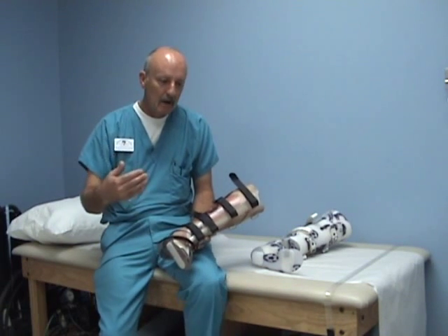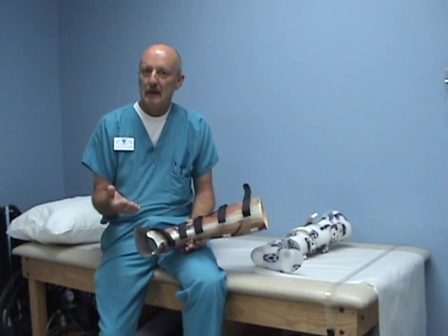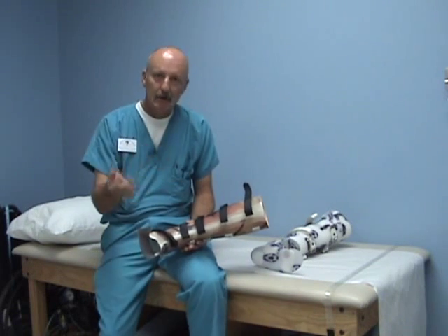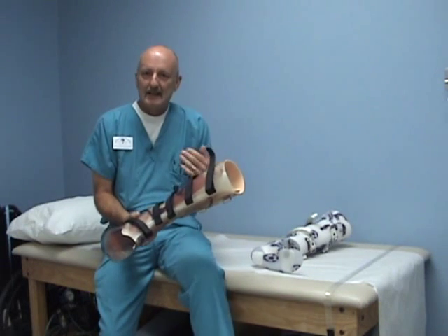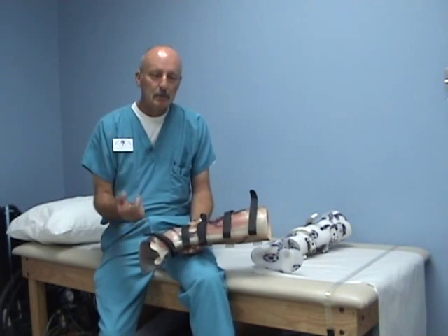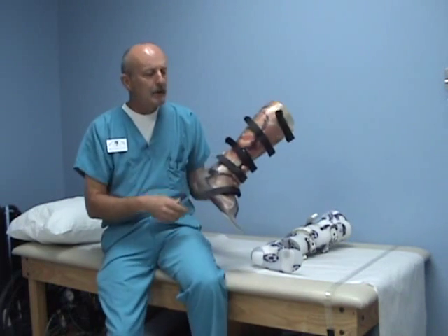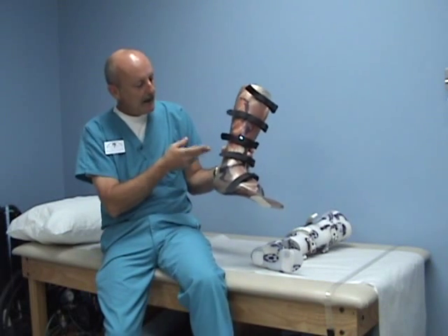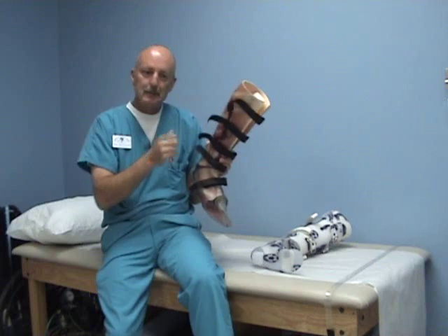I won't go over what I used to do to try to unweight a foot, but I will say that a technician once mentioned to me, 'Why don't you just cut the cast rather than do all the buildups and adding of a false bottom that you used to do on your negative cast?' When he asked that, I said, 'Well, you can't do that,' but then after I thought about it, I thought it was a brilliant idea. How I do it is I take the negative cast and right above the ankle, at the narrowest point, I cut it right here, then I separate it a half an inch, add tongue depressors, and staple it together.